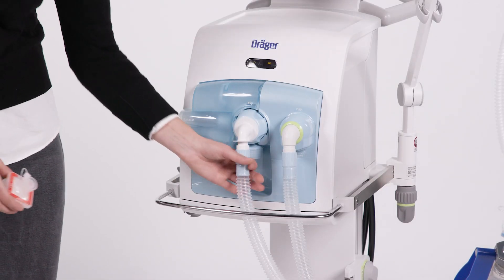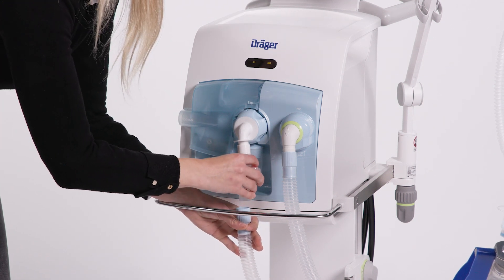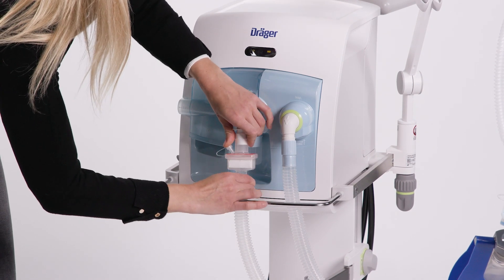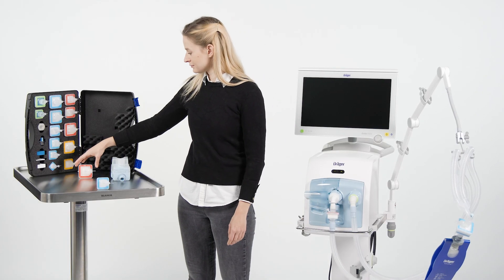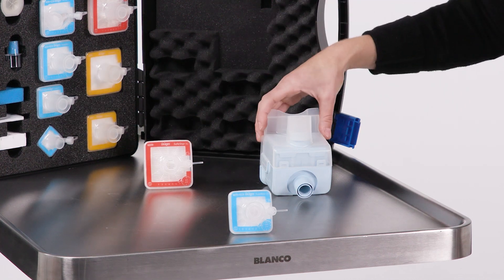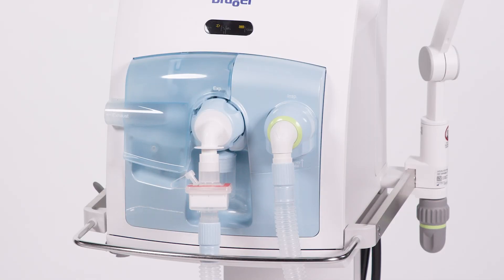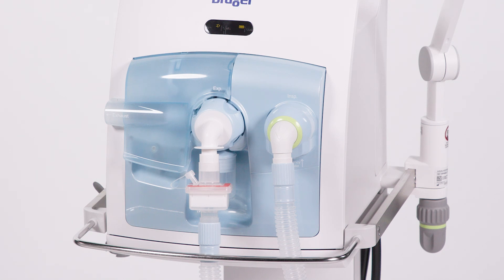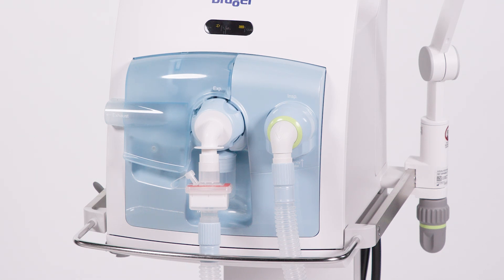The next step is to insert a filter into the expiratory branch. In this example, a SafeStar 55 plus filter is used. Alternatively, a SafeStar 90 plus or an EHF can be used. The filter is placed in the expiratory branch in front of the expiratory valve of the ventilator to protect the user and the ventilator from contamination.